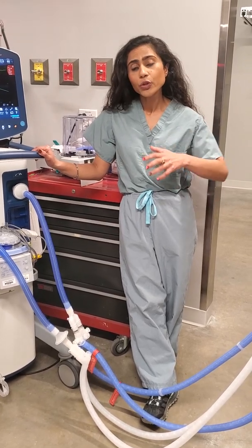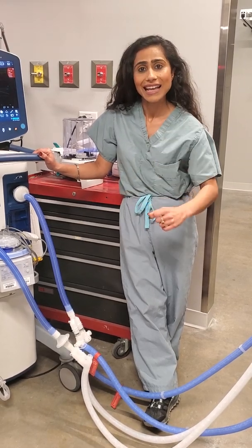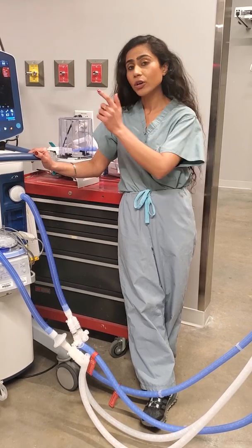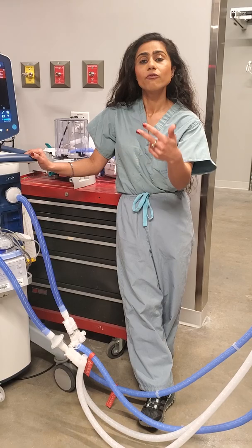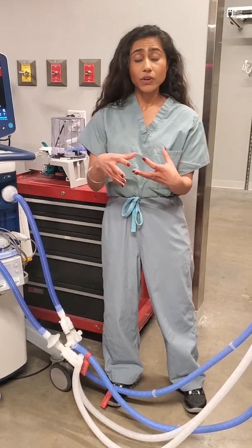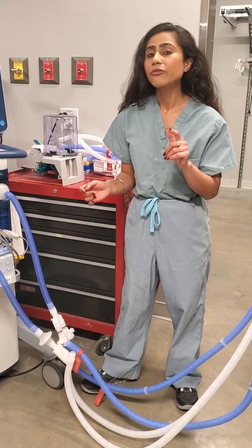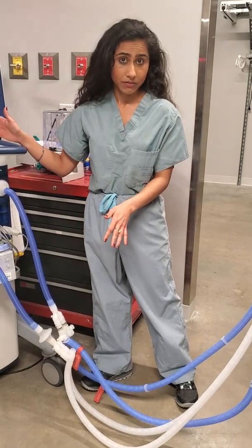The reason is you want all patients sharing the ventilator to be passive. For example, if one patient is tachypneic and triggering the vent, it's going to cause all other patients to hyperventilate as well. If patients have severe ARDS and are paralyzed, that solves the problem — but if not, you probably want to go up on the trigger threshold on the ventilator.